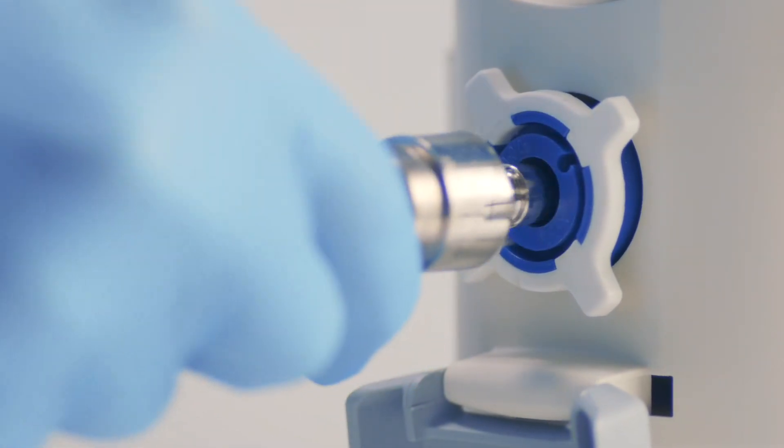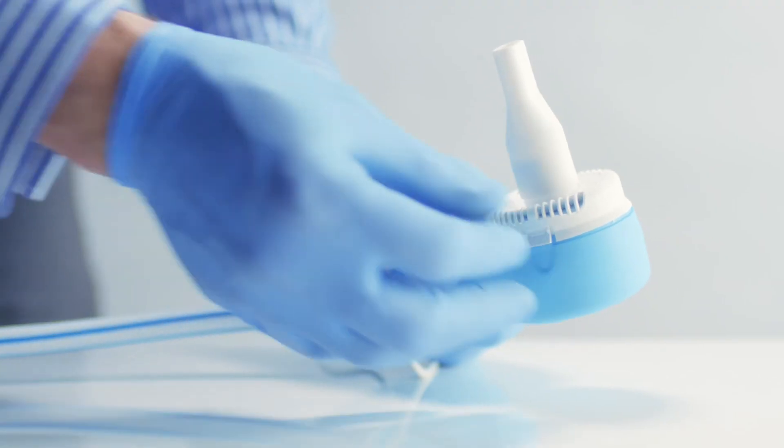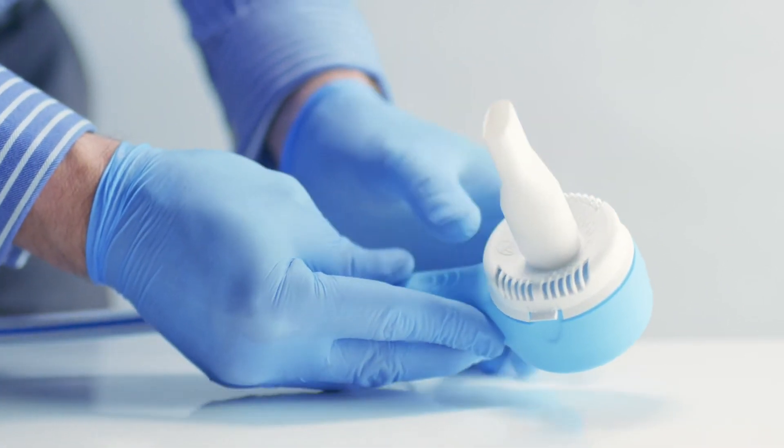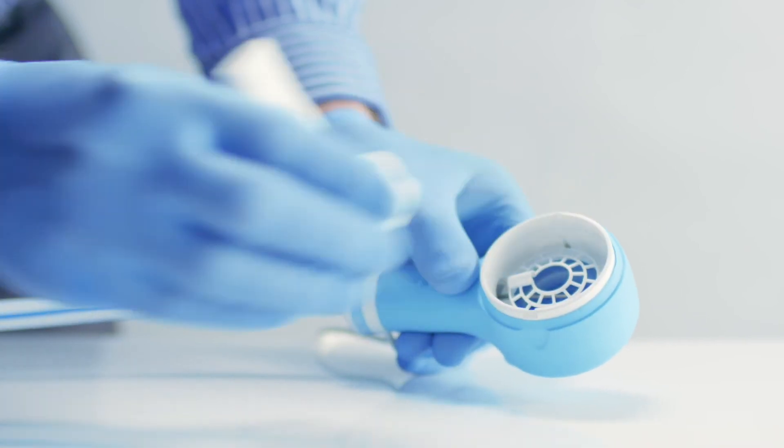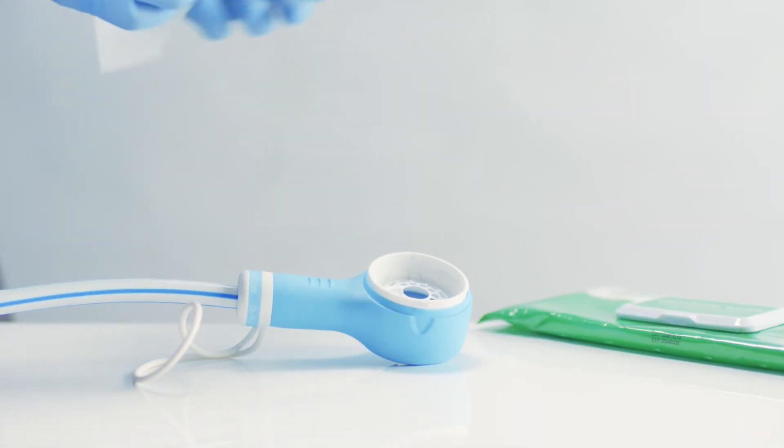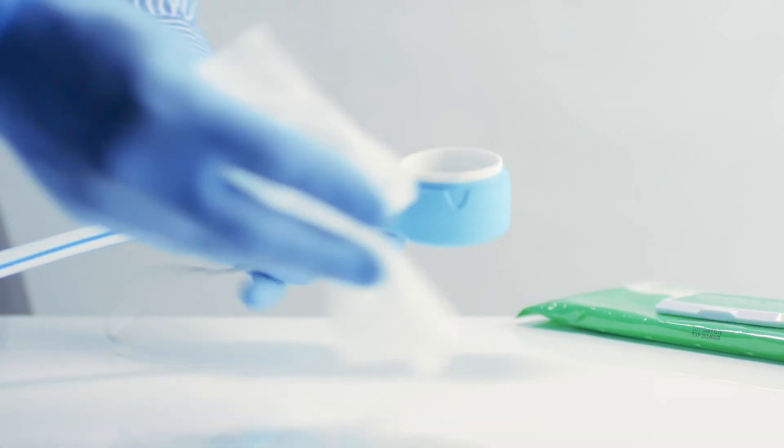After use, disconnect the gas supply. Remove the exhalation valve and dispose of it as clinical waste in accordance with local policy. Clean the demand valve using an alcohol or disinfecting wipe. Make sure to clean the hose too.